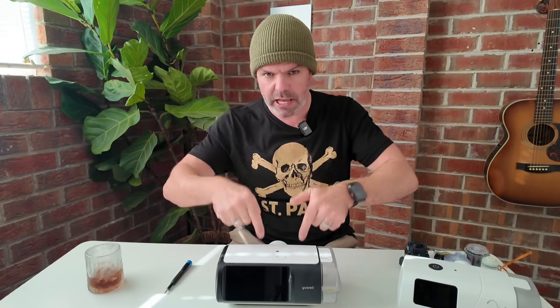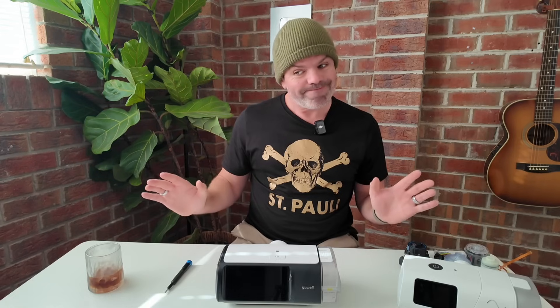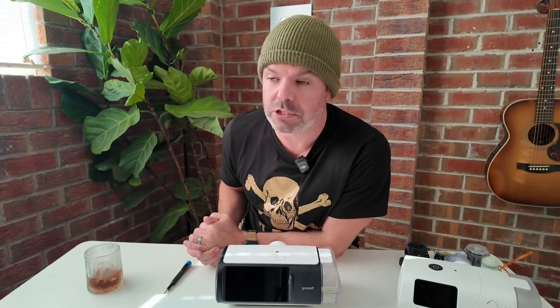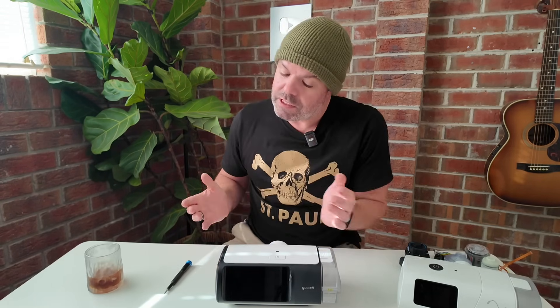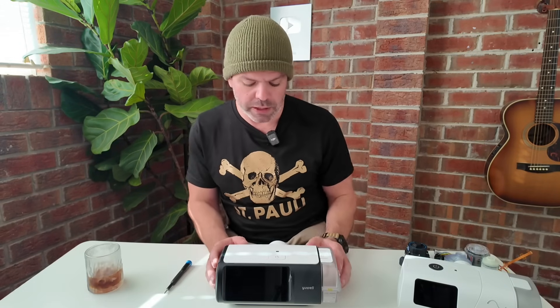So I thought today we'd take it apart, because obviously it's quite easy to just whack a big touchscreen on a device and say, hey, check it out. But what's happening under the covers, under the hood? What's the engine look like? What's the manufacturing look like? In the past, the devices coming out of China haven't been too crash hot. They're chock-a-block full of foam, and the manufacturing's a bit shit. But this might be about to change, and I think that's why ResMed might be a little bit nervous.